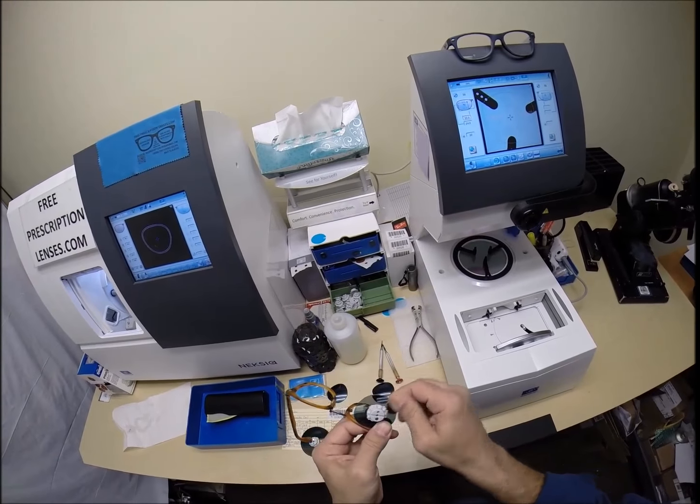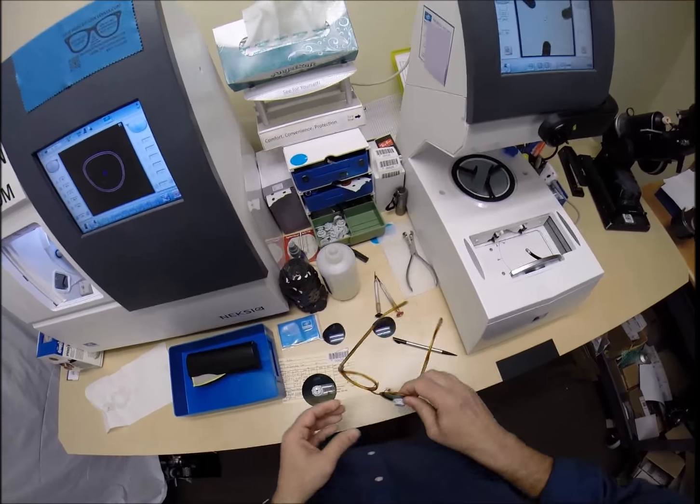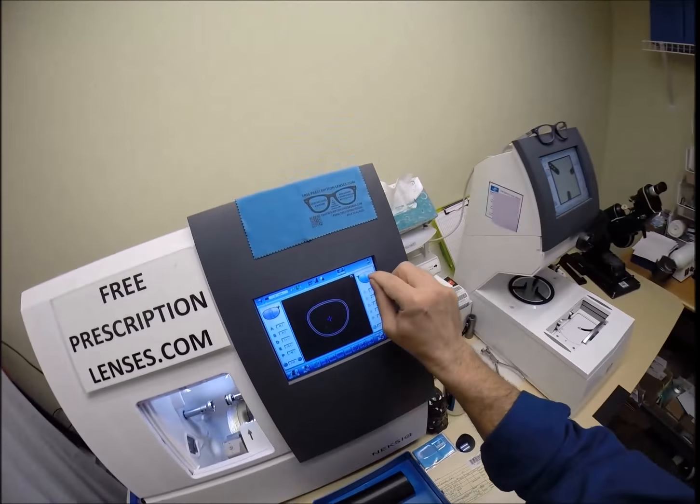Actually, I want to see one thing there. Clean that off the edge of the lens. Take your lens, tuck it in the outside corner, press down, and it snaps right in. Let's go ahead and start cutting the left lens.